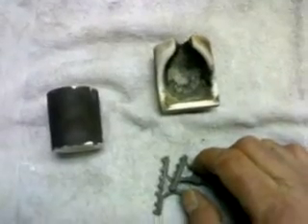We will be putting our reservoirs inside the casting ring, inside the casting crucible, and it will be heated by flame. But this actually does produce an oxidation inside the crucible, which if you're doing PFMs — frameworks for porcelain — it might turn out to have negative results. Because these oxidations might be trapped inside the melted metal and be brought into the ring.